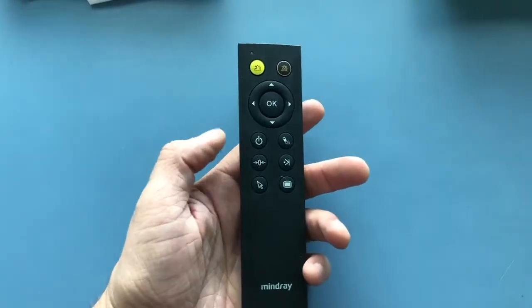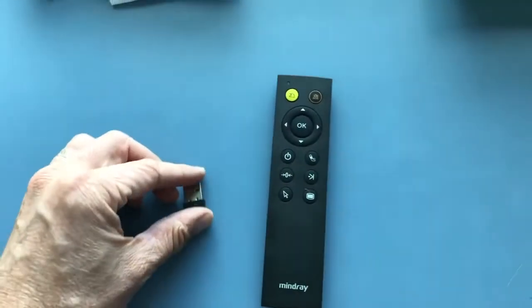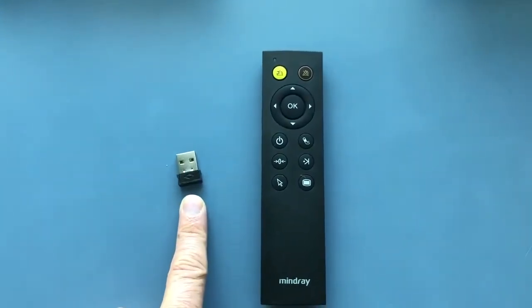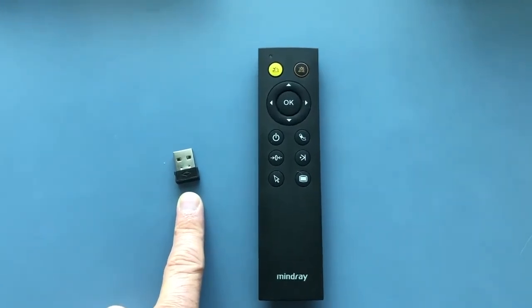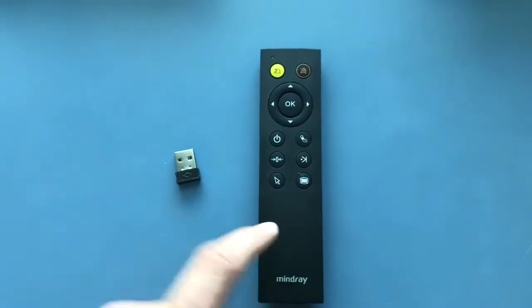There are two parts to the remote control: the handheld remote control part, and the USB dongle that plugs into the back of the monitor. Once the USB is plugged in, you won't notice it — it's right in the back of the monitor. However, you do need to remember that it won't work without this, so if you're moving from one bed space to another you need to take it with you.